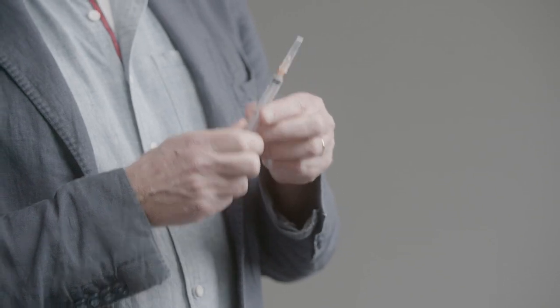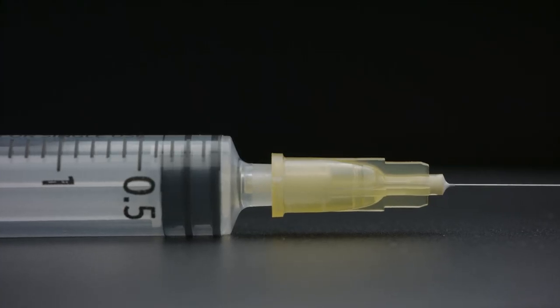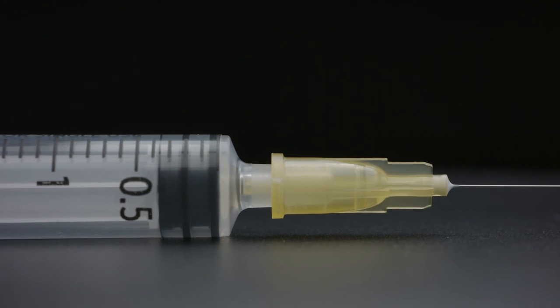The plastic spike fills the void space and reduces the dead space significantly. A low dead space needle attached to a syringe has a dead space somewhere between 10 and 35 microlitres.